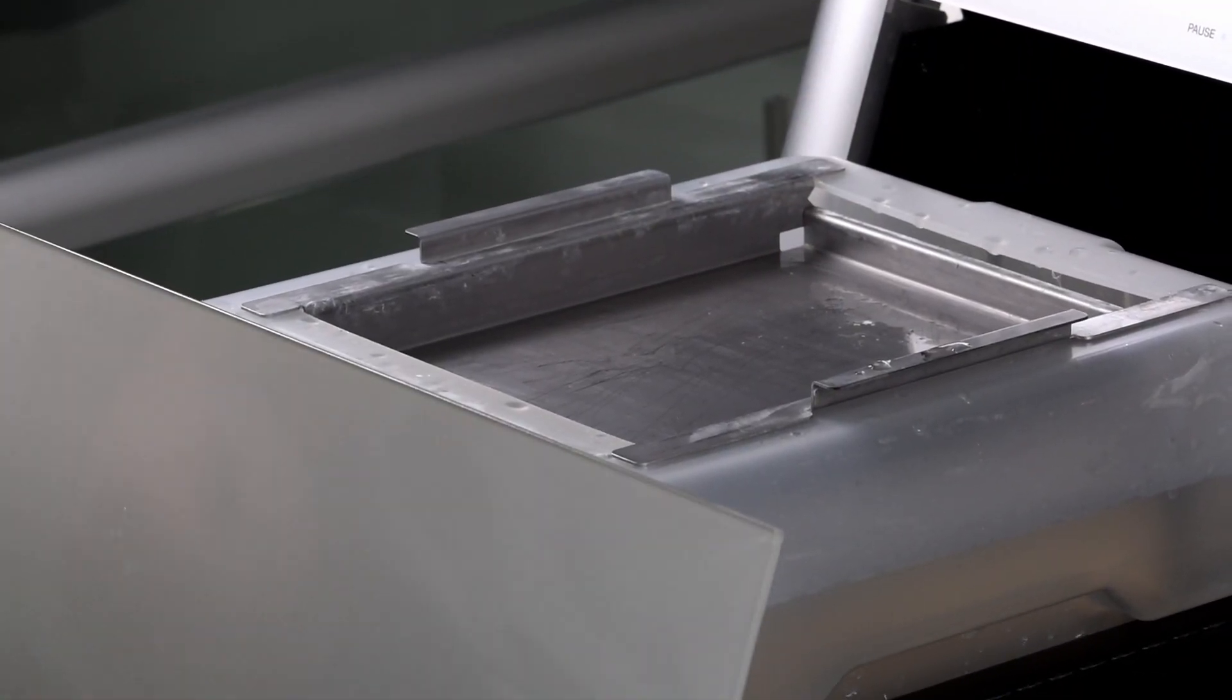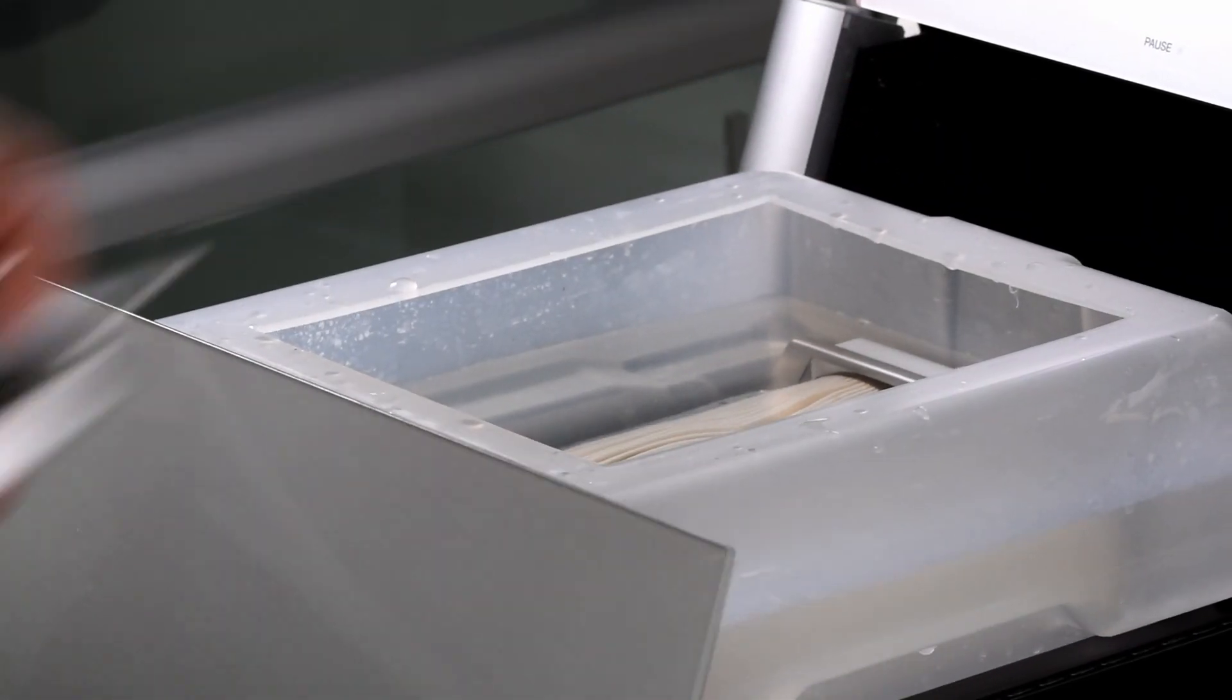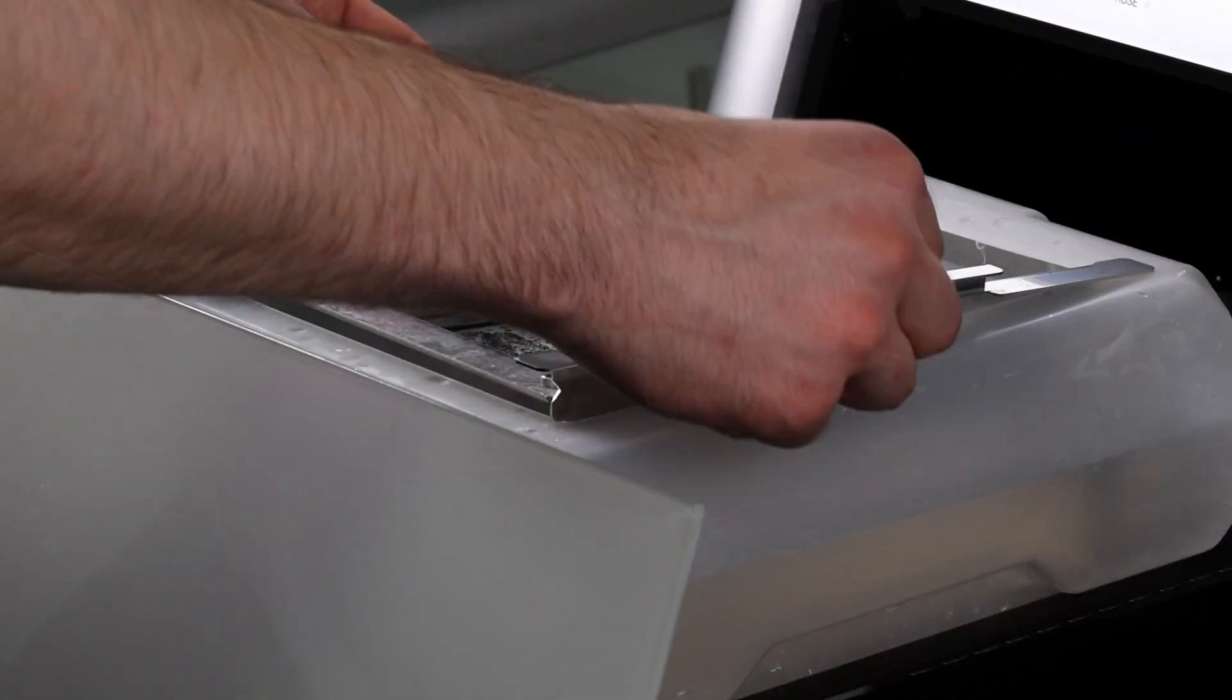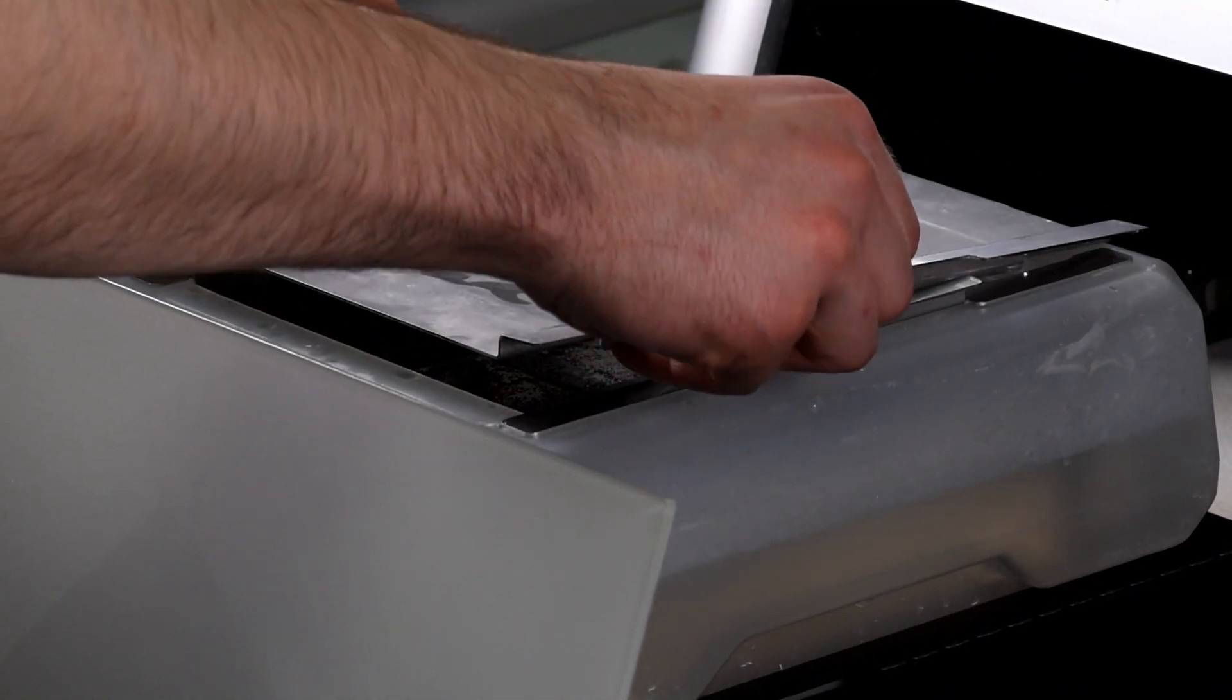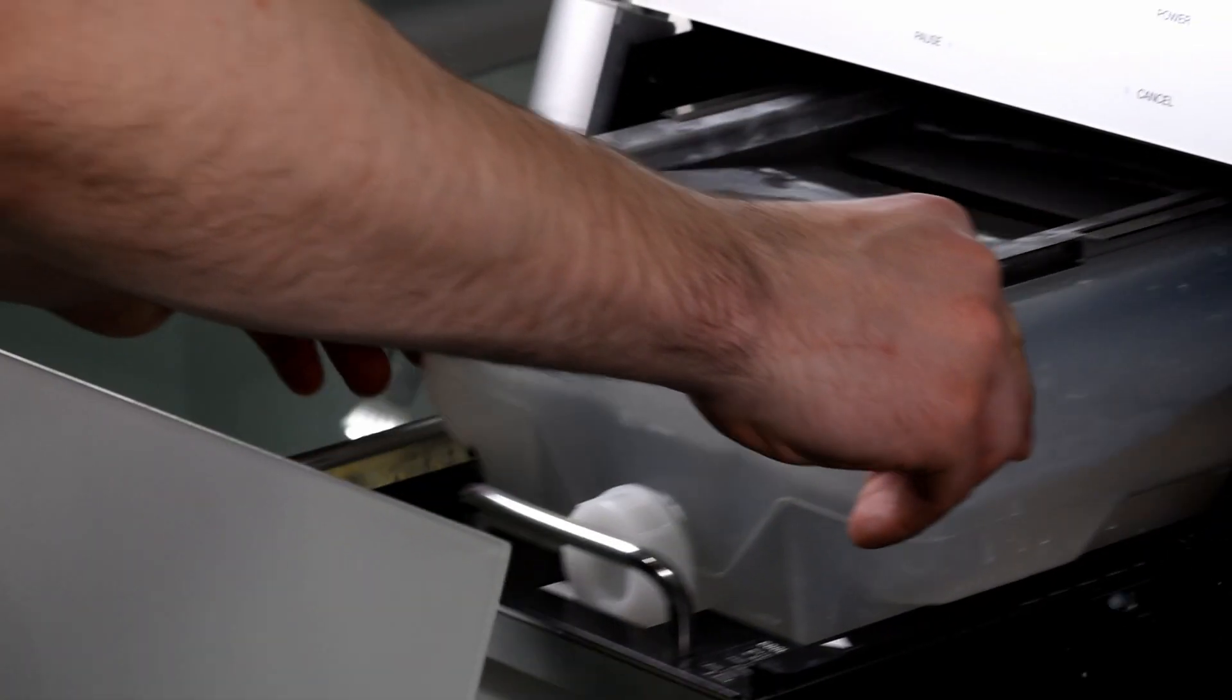To manage waste, remove the standard waste tray and replace it with a special filtration tray designed to protect your tank filters.